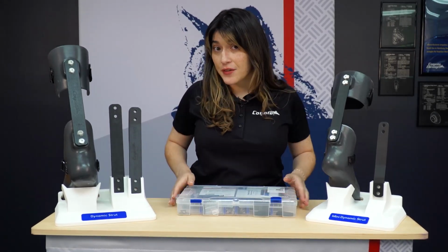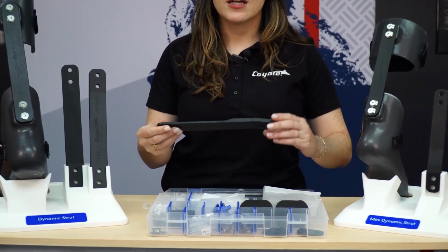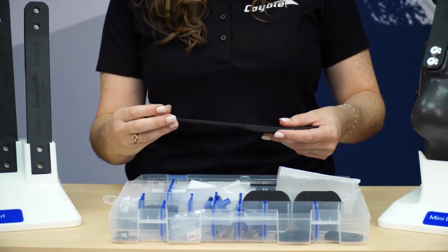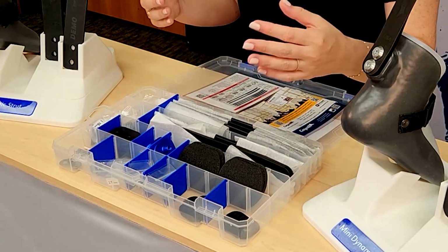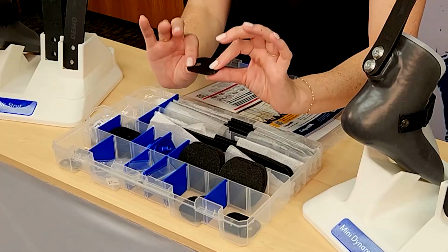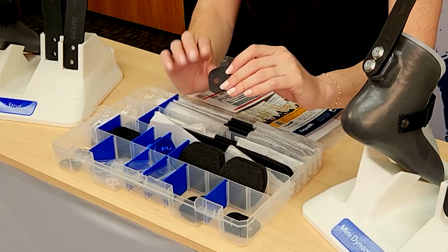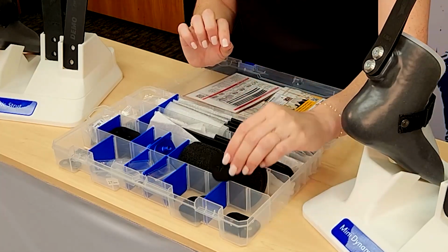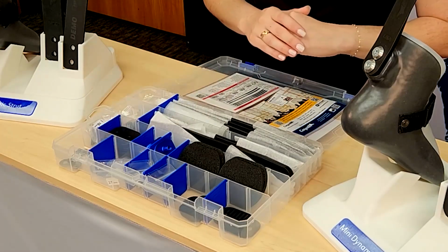So this is our standard fitting kit, and this is going to include one of each of our flexibility levels that we offer. So there's going to be an extra soft, soft, medium, rigid, and extra rigid in this kit. There's also one of each of the parts and pieces that allow you to continue to optimize your fit and function. We have flexion and rotation shims that allow you to make post-fabrication alignment adjustments. So if you need a little bit more rotation or plantar flexion, dorsiflexion alignment changes, we do have those available, as well as additional screws, mounting plates, dummies, and padding.